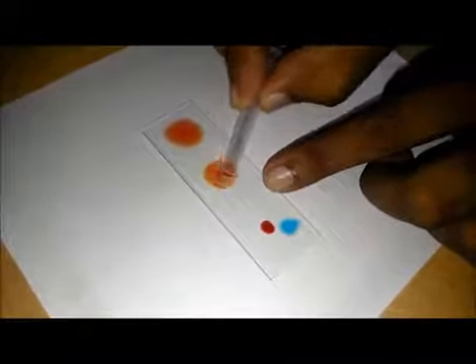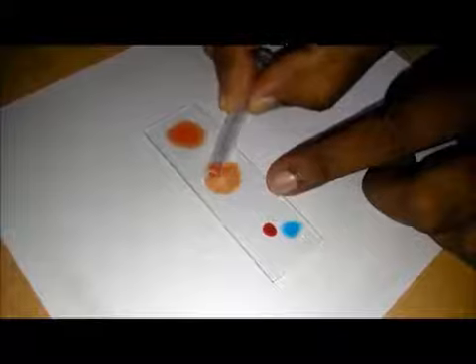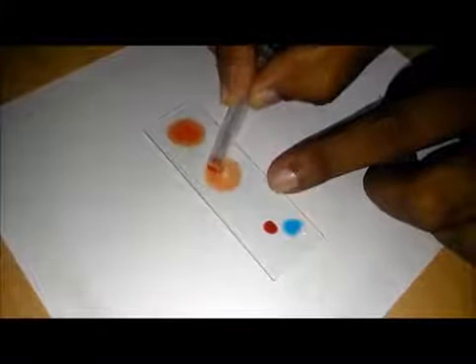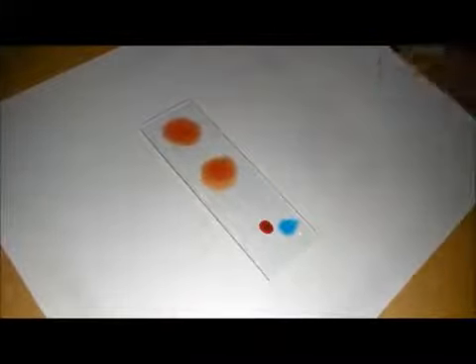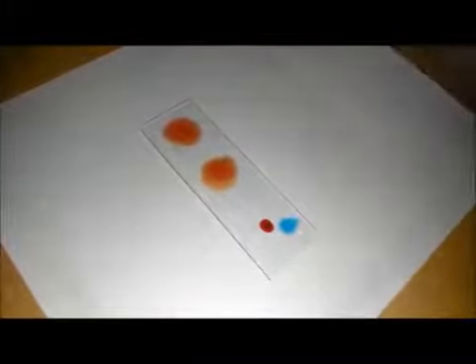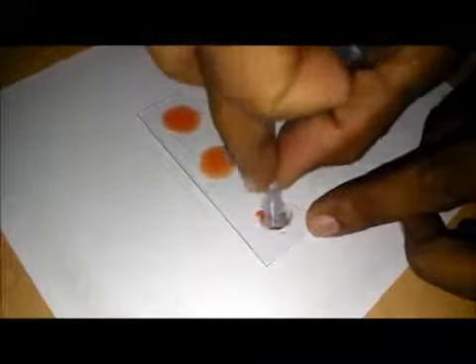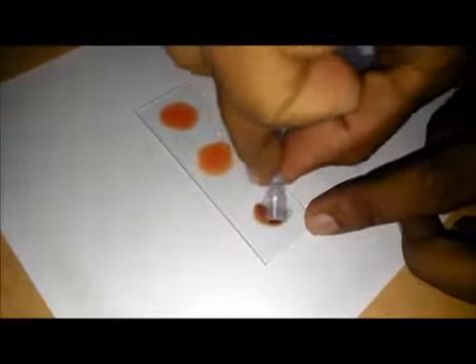Just do not mix from the same side. I am using the other side of the needle cap to mix each drop from different corners.